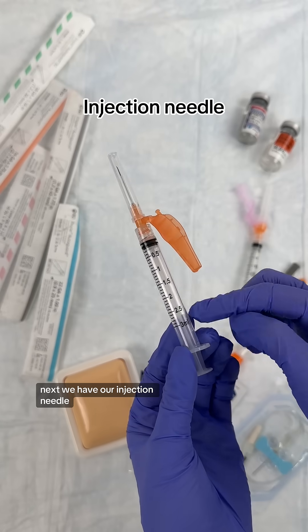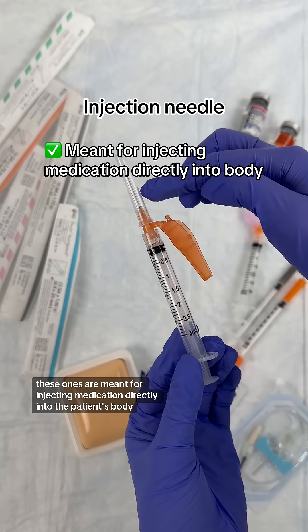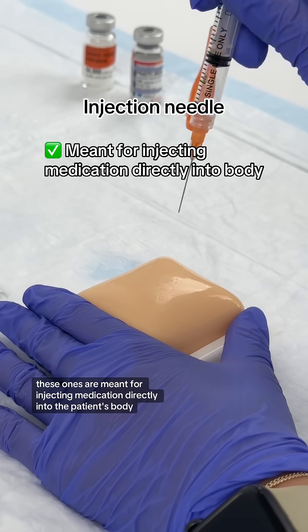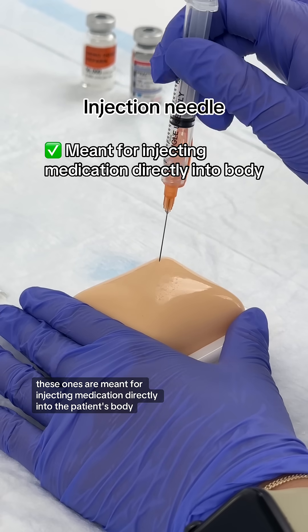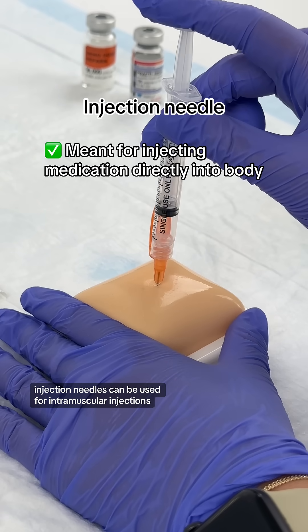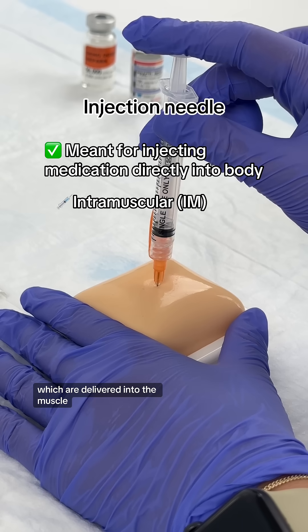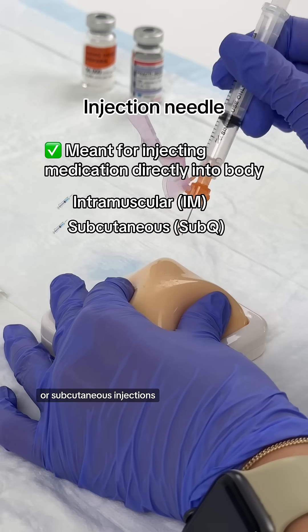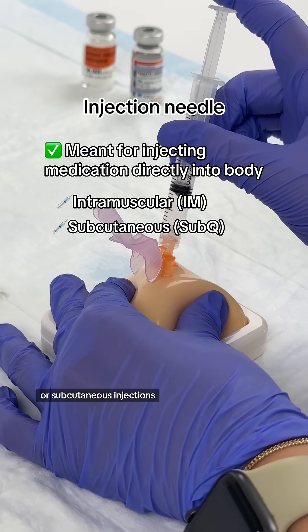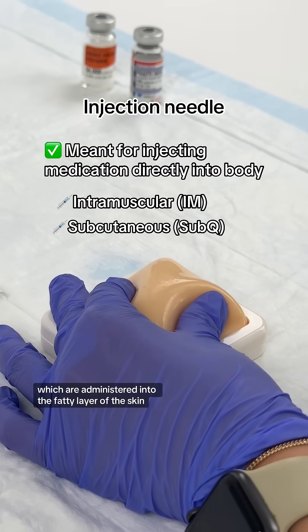Next, we have our injection needles. Like the name says, these ones are meant for injecting medication directly into the patient's body. Injection needles can be used for intramuscular injections, which are delivered into the muscle, or subcutaneous injections, which are administered into the fatty layer of the skin.